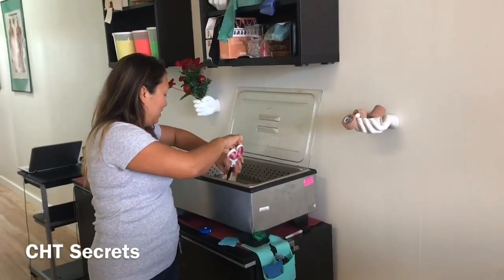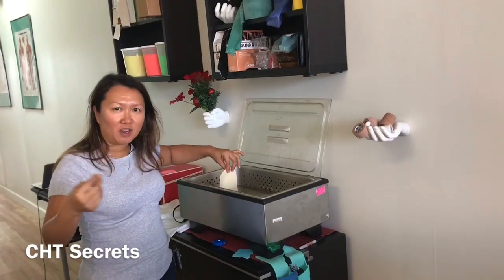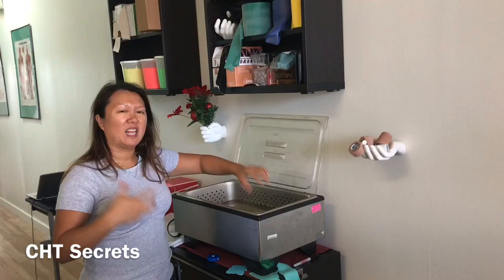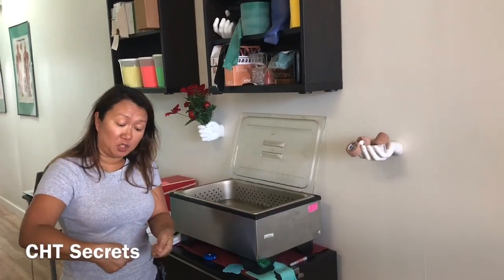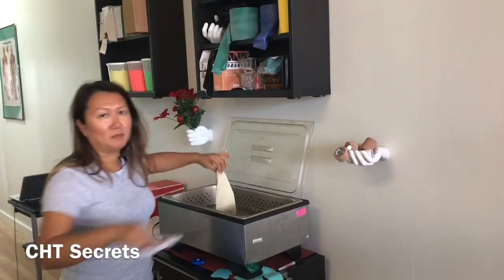It's terrible. So if you can't stretch it with your fingers because it doesn't have a lot of give, use the towel — pinch on the side and stretch it. That's my tip for today.